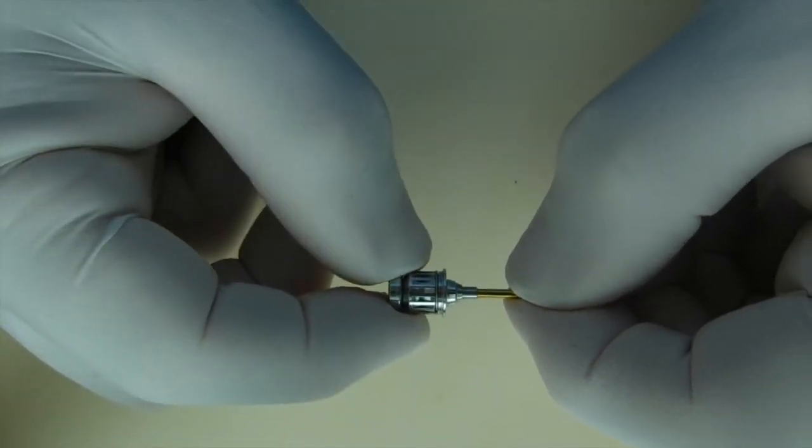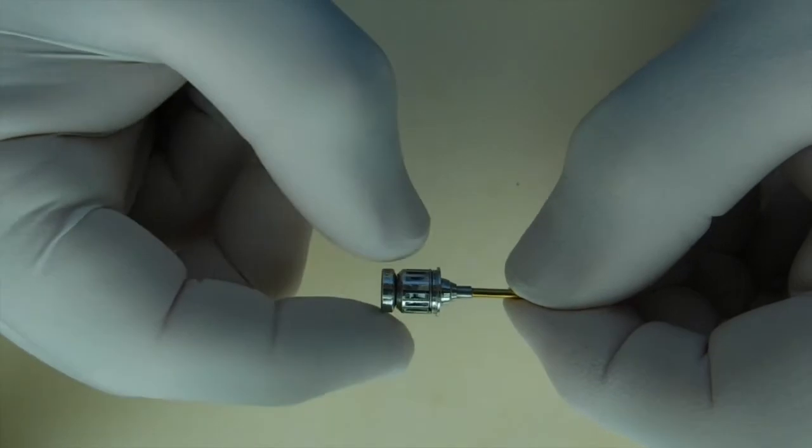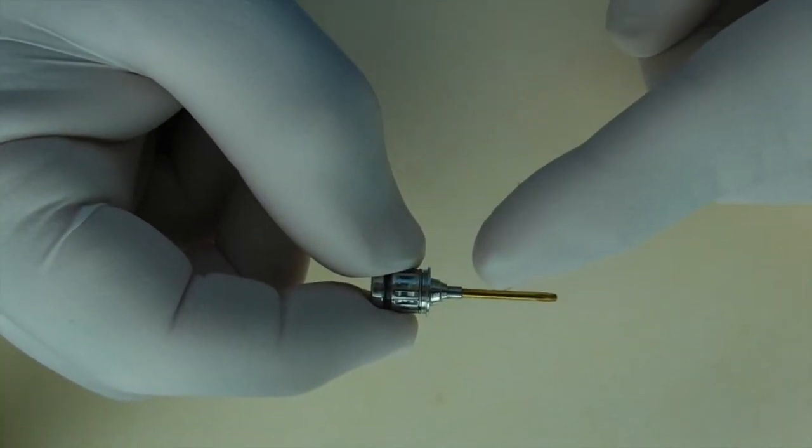Put it in, spin the handle until it clicks. It's very important that these two are completely engaged.